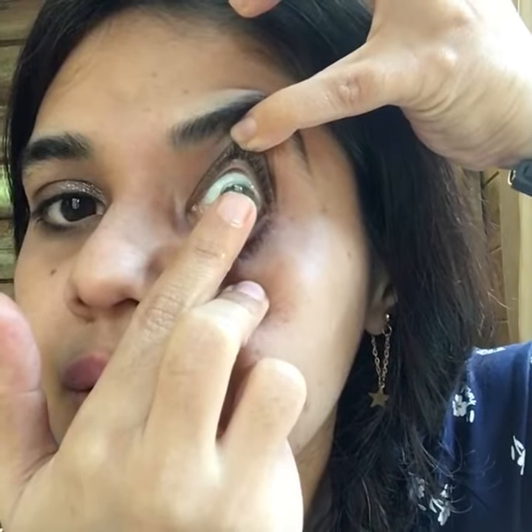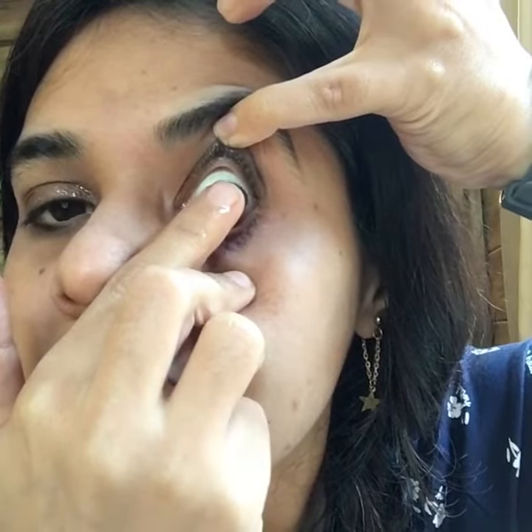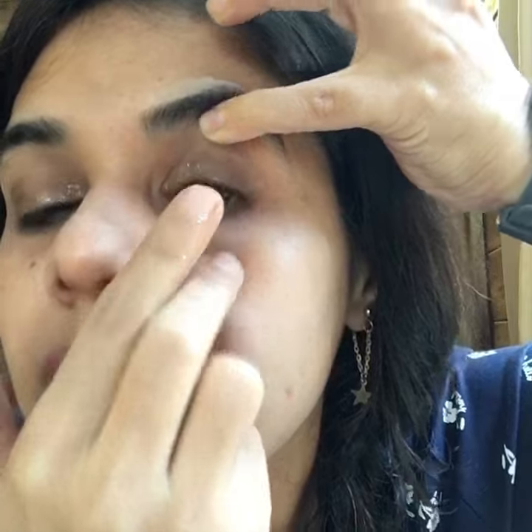I am going to open it. All you need is to take your lenses out from the solution — right now they are spinning in the solution. Place it on the tip of your index finger, open your eyes a little wider, and just place it. That's all.